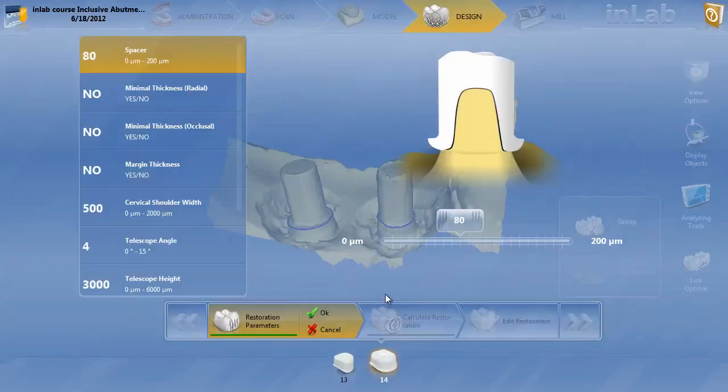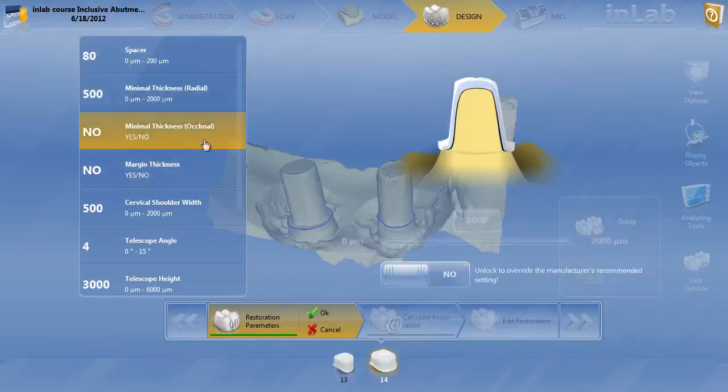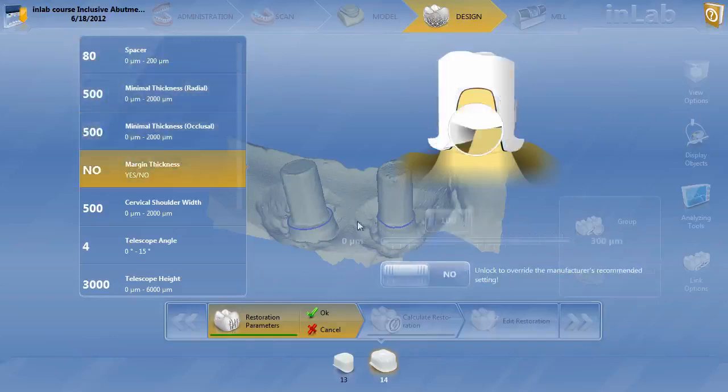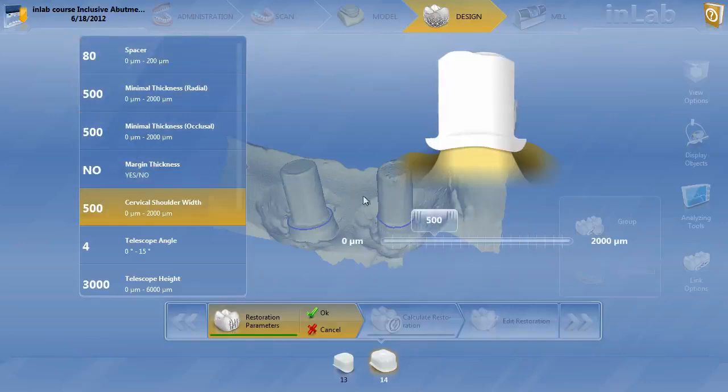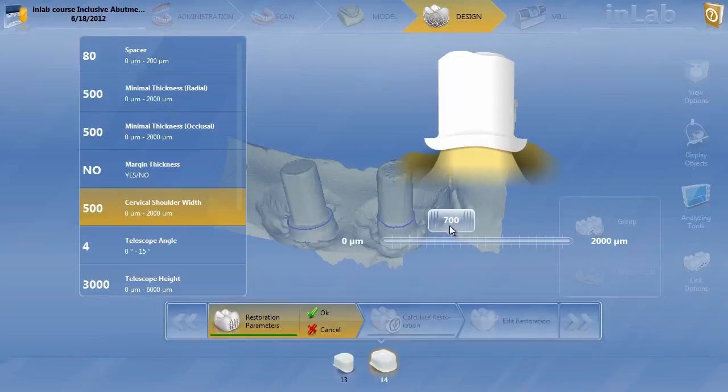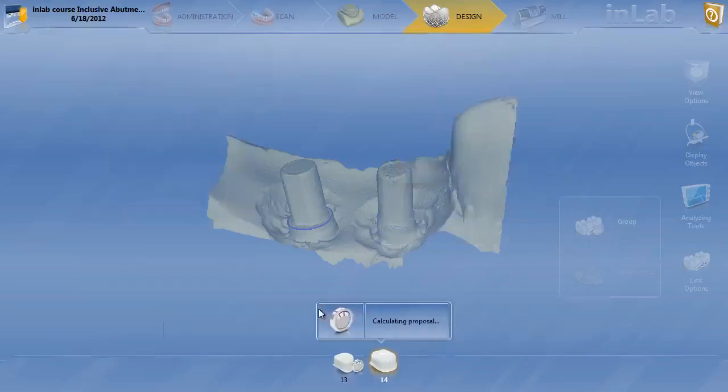Now on the parameter step, you're probably not too familiar with the parameters. Just like abutments, I don't worry too much about the parameters with the telescope because you can switch them later. But you've got the spacer, the minimal thickness. We're going to keep the minimal thickness right around 500 for both. Margin thickness, 100 is good. The cervical shoulder width, you can see here on this graphical illustration that as I move this out, it's actually controlling the shoulder of the telescope. This actually is going to control the shoulder of our custom abutment that we're making on these telescopes. So let's go ahead and set it at 700, and we're really not going to worry about the height because I'll show you we can change that later.